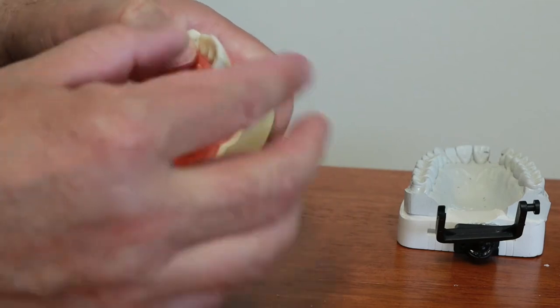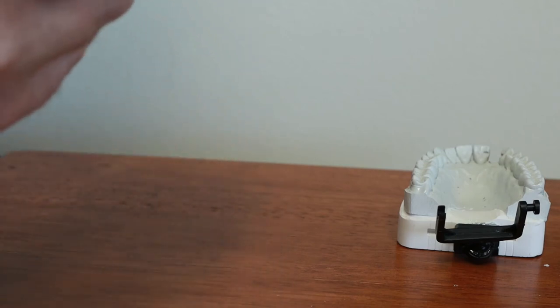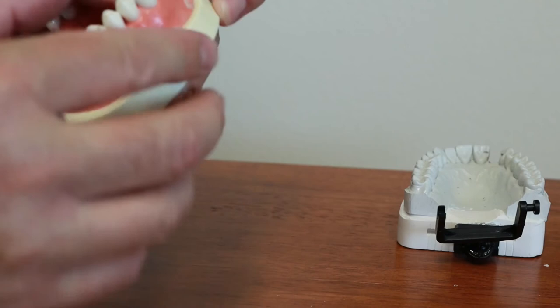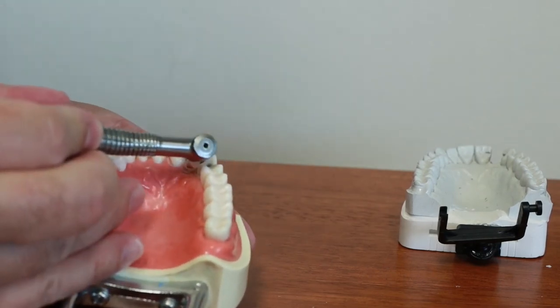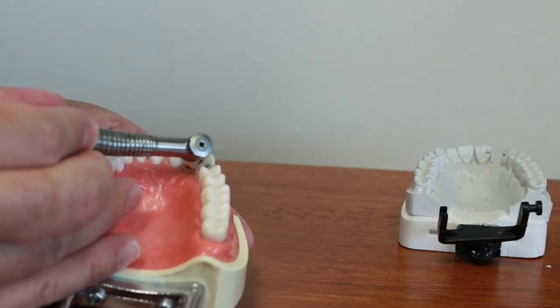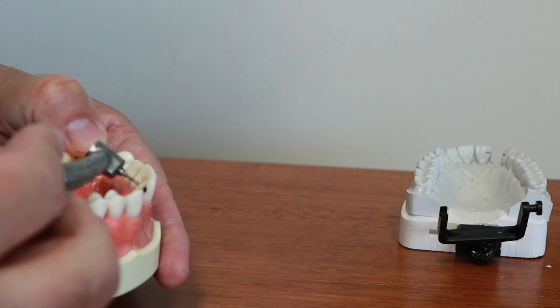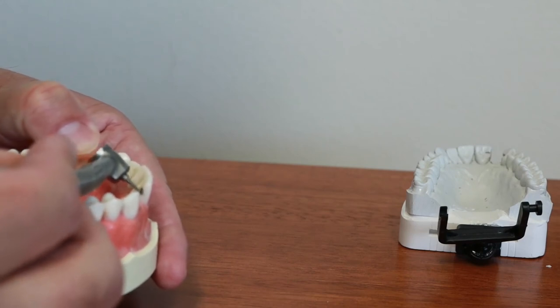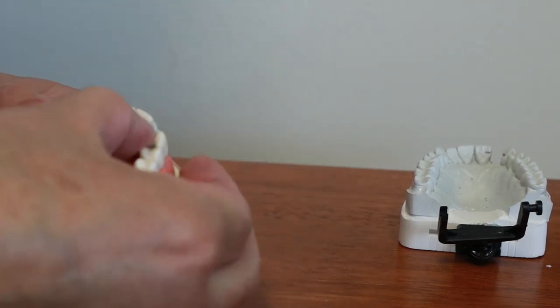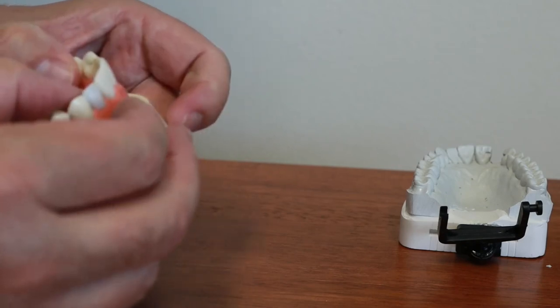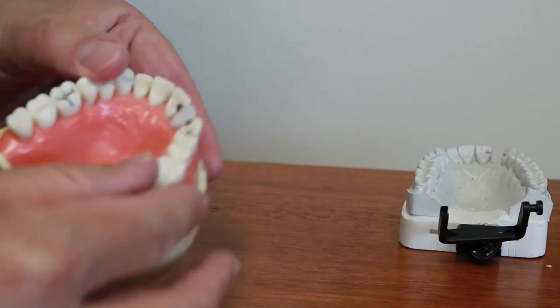And there we go. I think we got it in spot, in place. A tiny bit more maybe. Spoke too soon. Okay, there we go. Got it in place.